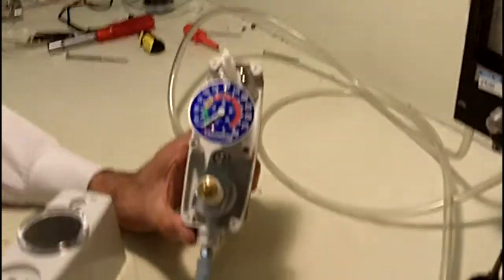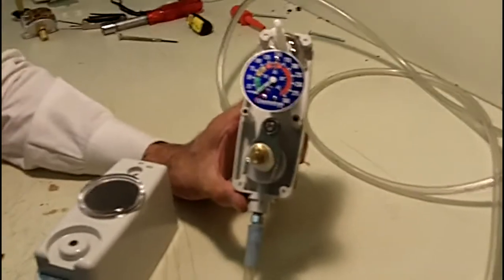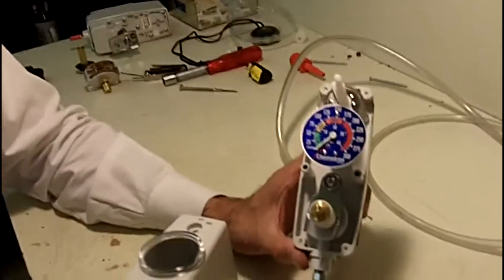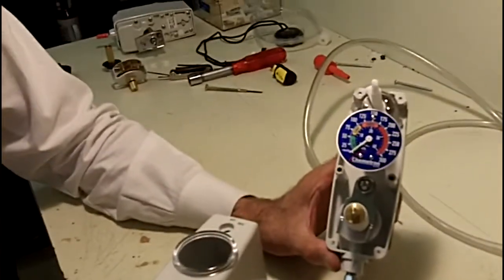I'm here with Ed Hildebrandt, our technical service manager, and he's going to explain the various things that could happen over time that could cause a regulation mechanism to be out of calibration or fail.